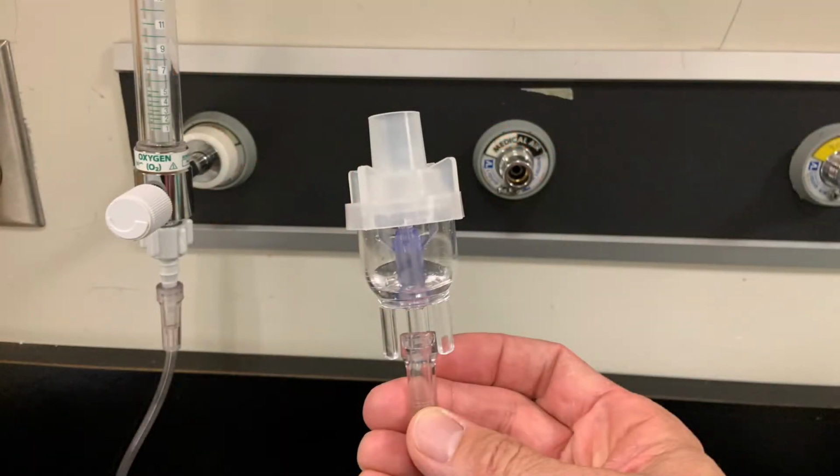I have placed between 2 to 3 milliliters of fluid into this small volume nebulizer to be aerosolized. Typically, small volume nebulizers are powered by between 8 to 10 liters per minute of source gas flow. You can use oxygen or air depending upon the needs of the patient. You can even use heliox if the patient has a severe airway obstruction.